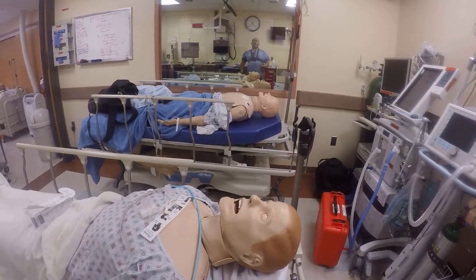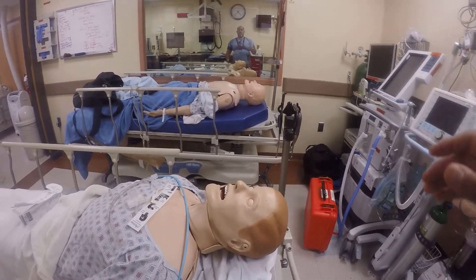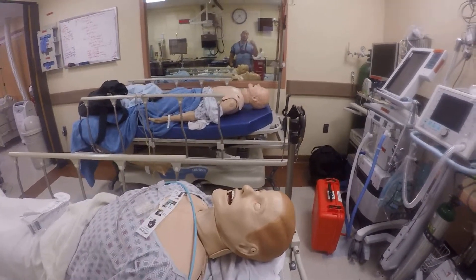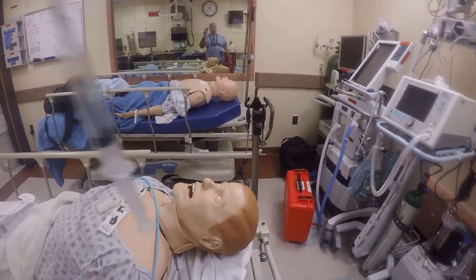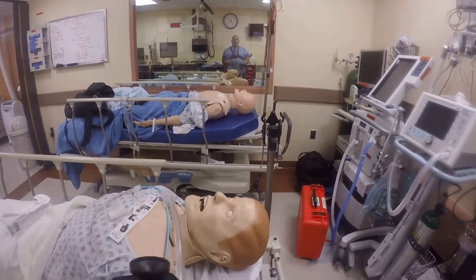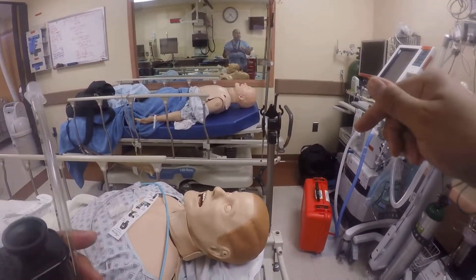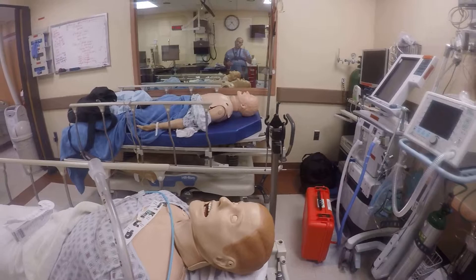Some of these patients may be exposed to superheated air and have thermal injury, angioedema, or anaphylaxis — the airway is closing up. You get a good view, but the airway is getting smaller and smaller and your tube is not fitting. Perhaps if I railroad a bougie through the ET tube through the entrance I'm trying to pass, I will get the tube in — perhaps.